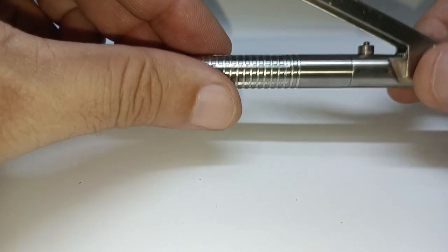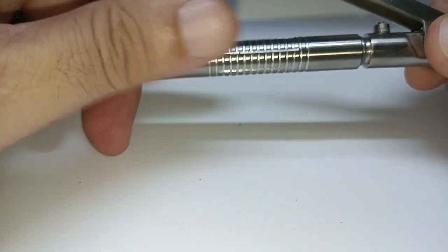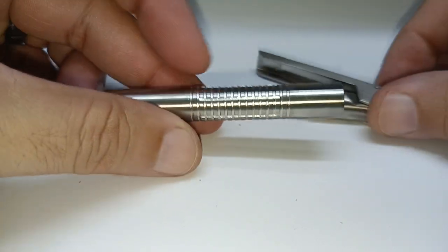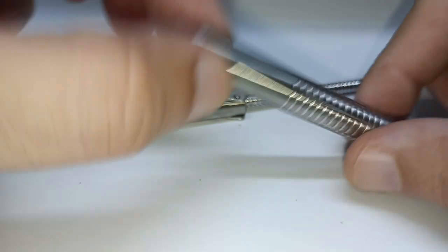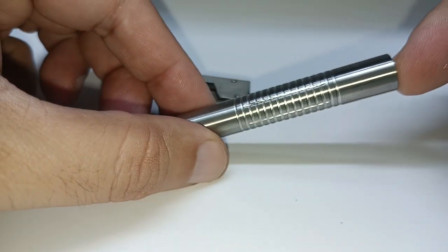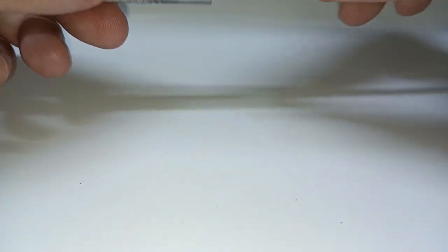This particular instrument is designed with safety in mind. What you would need to do is unscrew it, and in this little container you would slide your local anesthetic ampoule inside. Once you have slid it in, you would tighten it.